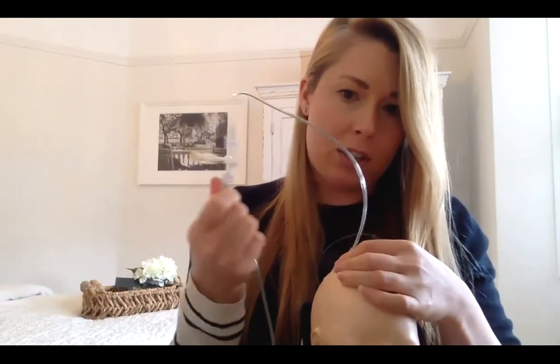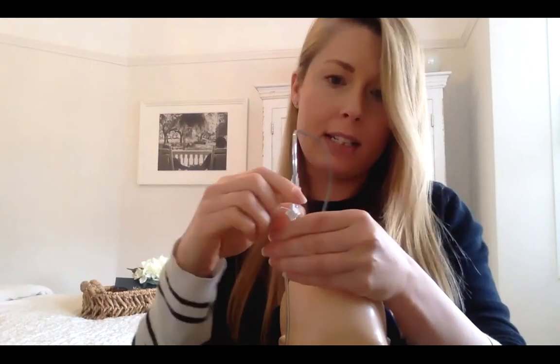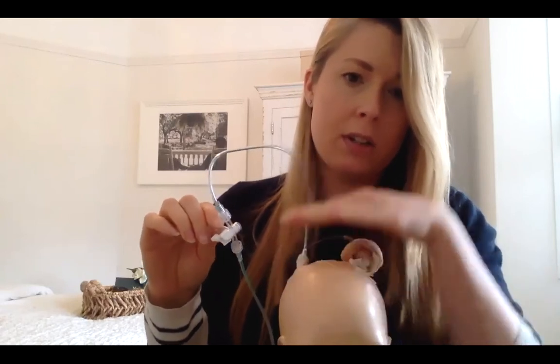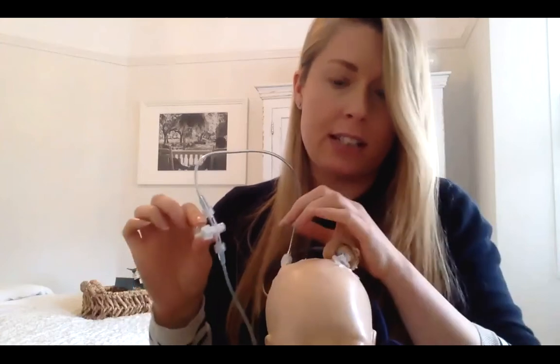And then there's always a tap at the end of the first catheter that comes out of the patient, and again, it's a two-way tap, like I said, on the entire system. So you always need to make sure that that tap is open so that drainage can come out. And the most useful way is to always track back from the patient to your drainage bag and then back in the opposite direction. And if you can follow CSF flow through the whole system, you can be quite confident that it's open.